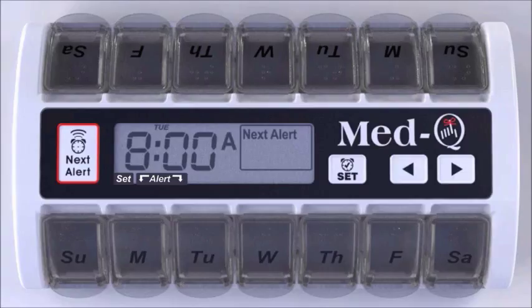The AM, PM will start to flash. Using the arrow key, scroll to A for AM or P for PM and release. Press the Set button and hold the arrow key down at the same time. Release. The second alarm is now being programmed.